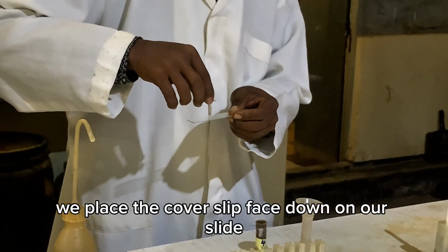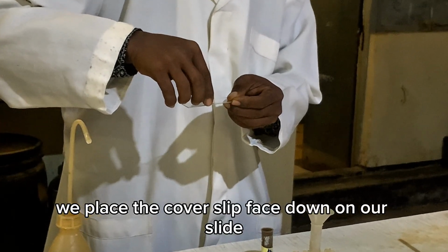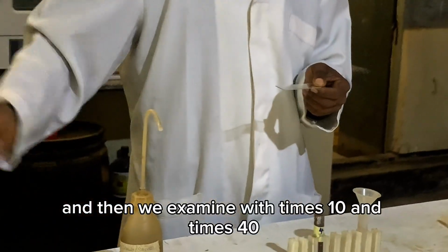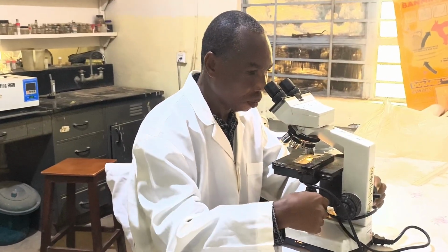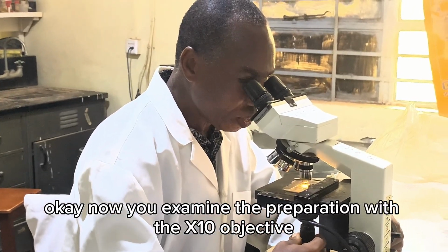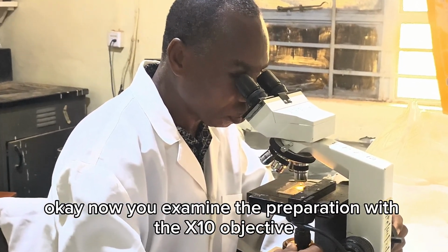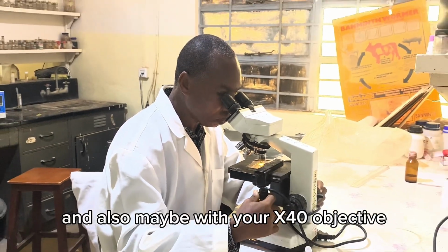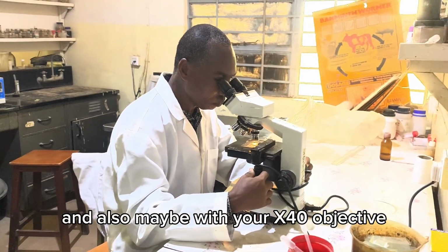We place the cover slip face down on our slide, and then we examine with times 10 and times 40. Now you examine the preparation with the times 10 objective and also maybe with your times 40 objective.